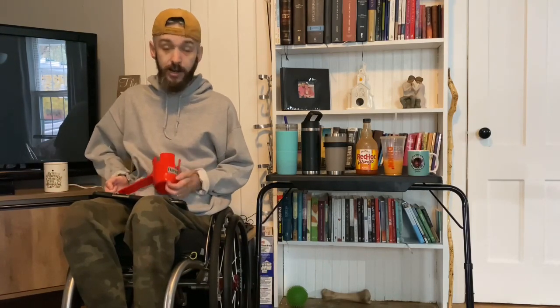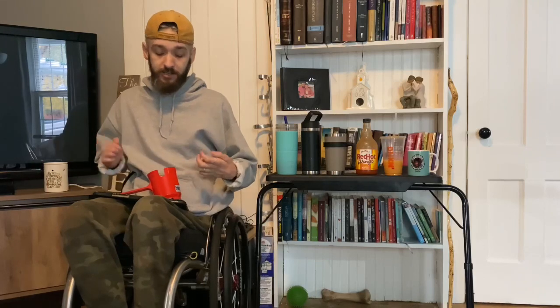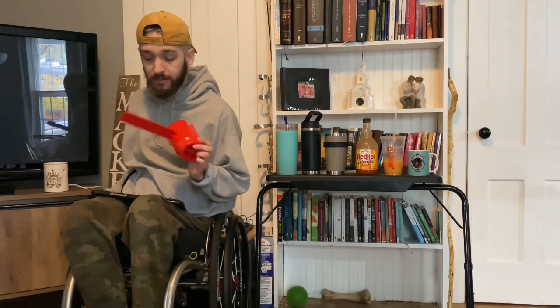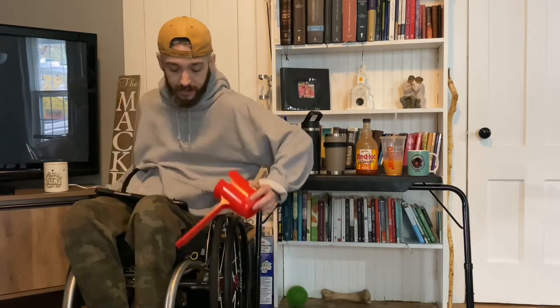What's really awesome about the Handy Cup is that it requires no tools and it can fit pretty much any wheelchair — whether that's a power chair, a manual chair, or a scooter. So even someone like myself with zero hand function can order one online, have it sent to me, and put it on all by myself. That is a huge plus because anything that makes independence easier for people like us is fantastic. You take the long stick and you put it right underneath your cushion and between your seat pan — stick it in like that and it is very secure. It ain't going anywhere and I can wheel and be about my business.